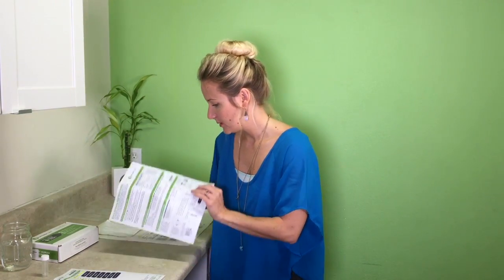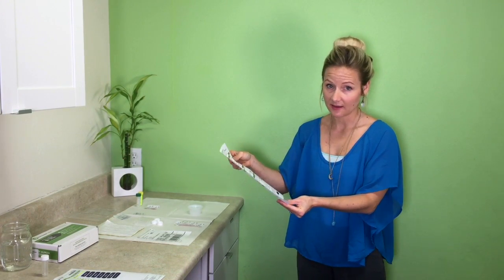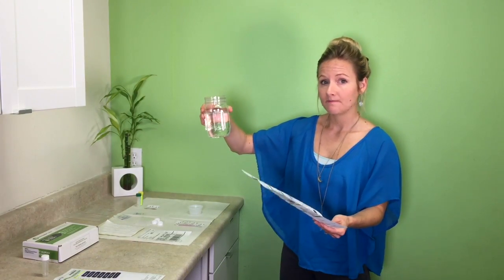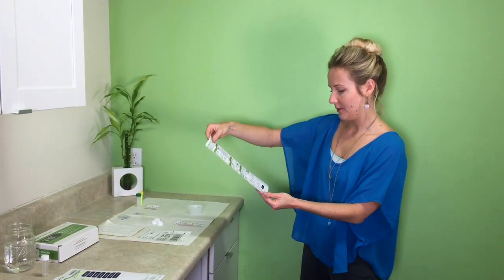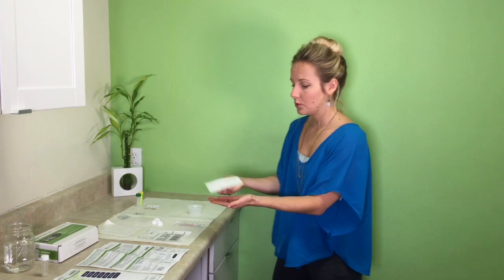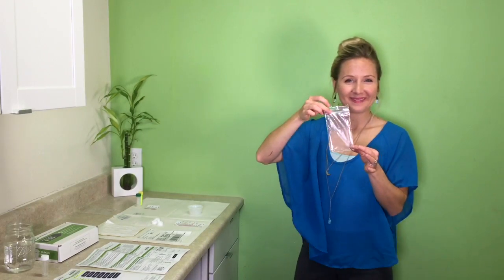As the day goes on, you're going to collect your other three saliva samples. You'll need to adjust your schedule slightly because for one hour before each collection you're not going to be eating, drinking, or exercising. One important tip before each collection: take a sip of water, rinse your mouth out, and spit it out — this removes extra skin cells so they don't cloud the sample. Once all the samples are in the refrigerator and you're ready to ship them, you can ship the next day. Wrap each sample in the absorbent pad and put it back in its respective Ziploc bag.